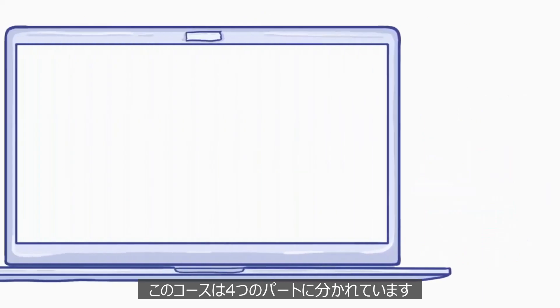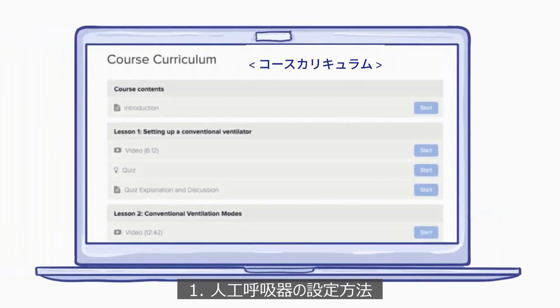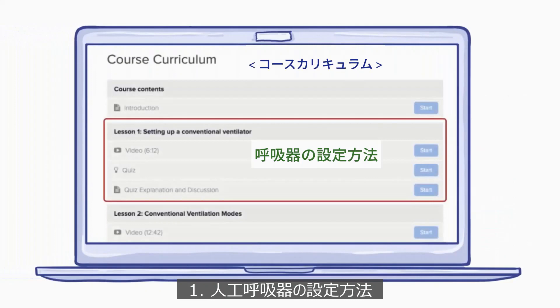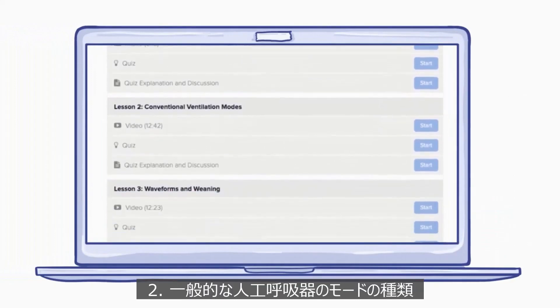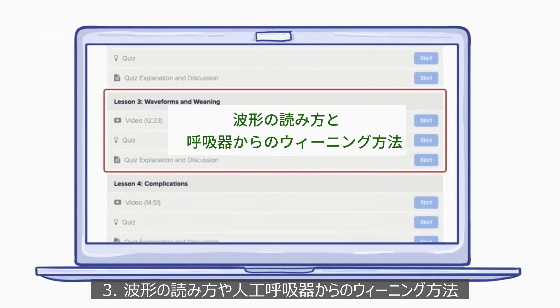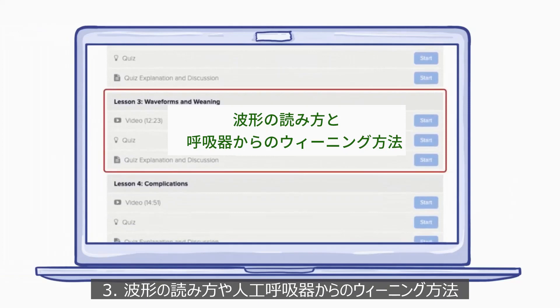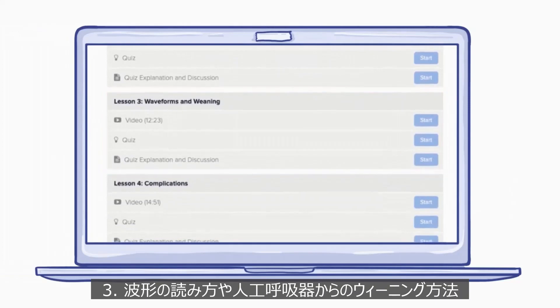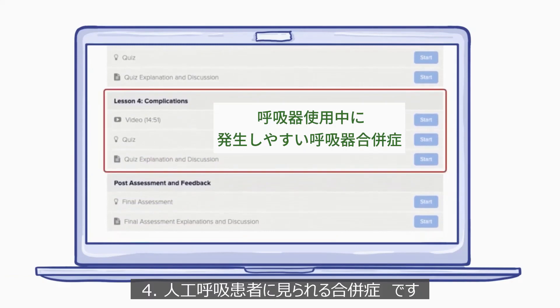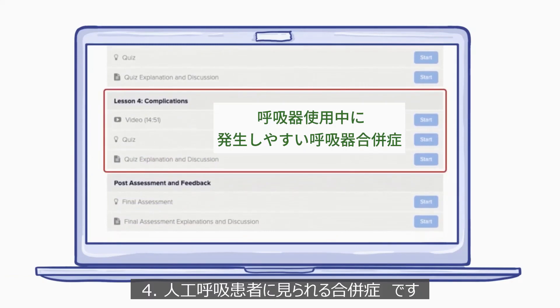This course is broken down into four lessons covering topics on how to set up conventional ventilators, different modes used within conventional ventilation, how to read waveforms, how to wean patients off conventional ventilation, and complications healthcare providers need to be aware of with ventilated patients.